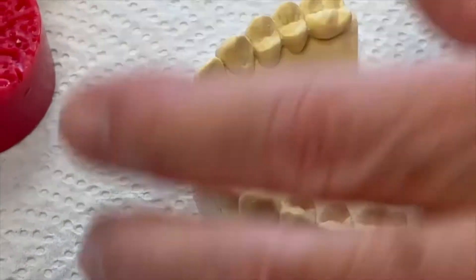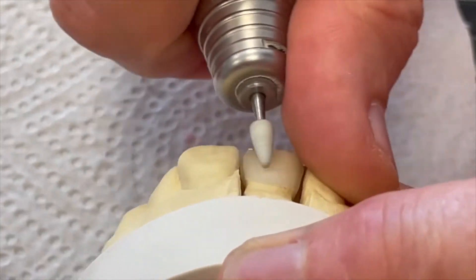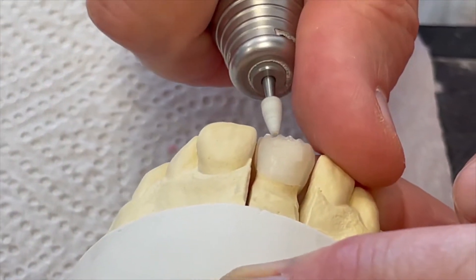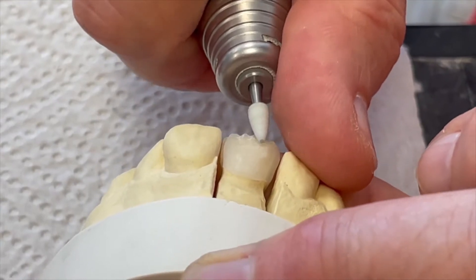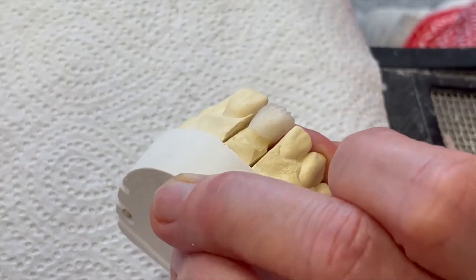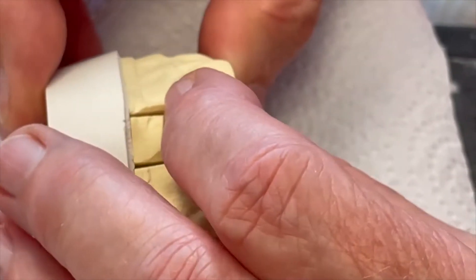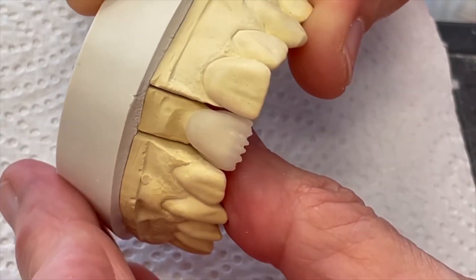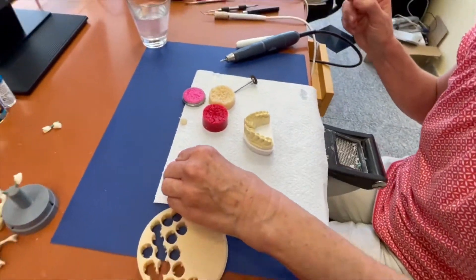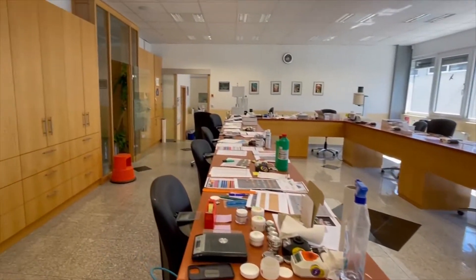We do some steps with the graining tool. This space is always for the special colors — I want to show you these special colors later. With the special colors it is possible to make more and more transparency in the crown so it looks more natural. Thank you, Andrea. Now we go over to another place to apply the ceramic.